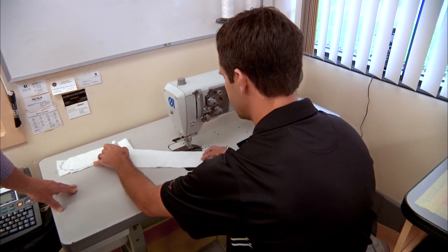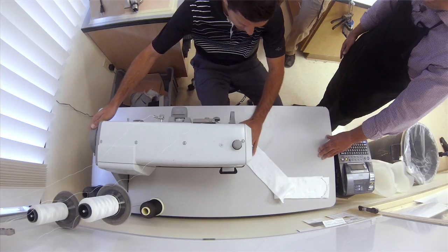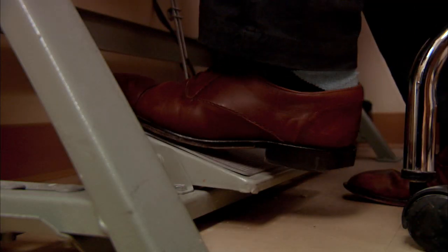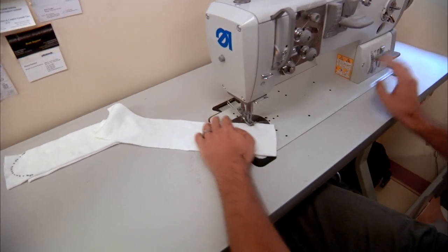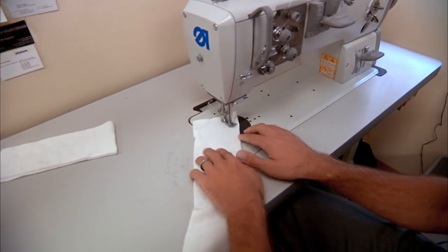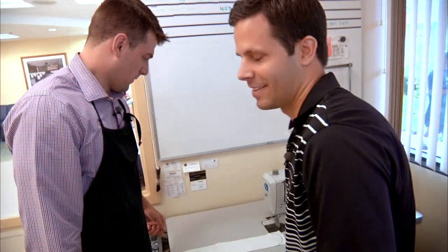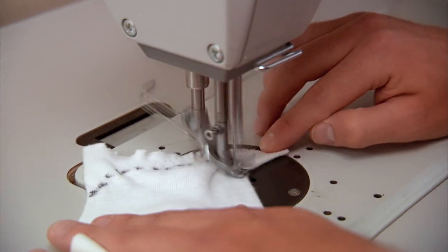We're going to create a BK casting sock. We're going to start here on the edge and use the foot pedal to push in. We'll reverse it, lock in the stitch, and then we're looking for just a nice rounded end to the sock. After a quick lesson, Brian wanted to give me a shot at the sewing machine. But unlike my Nana, I wasn't very successful.